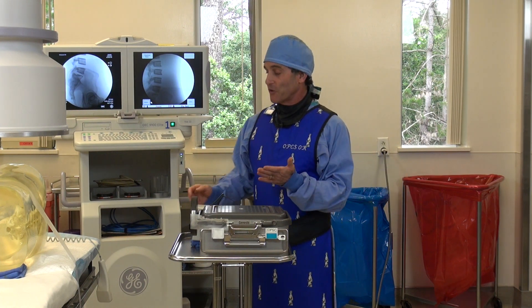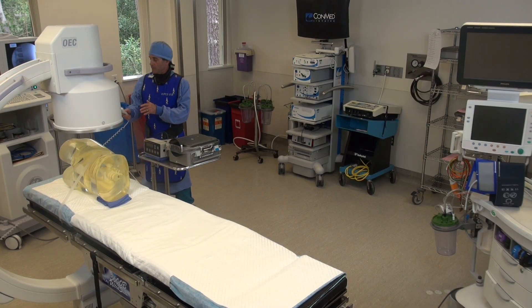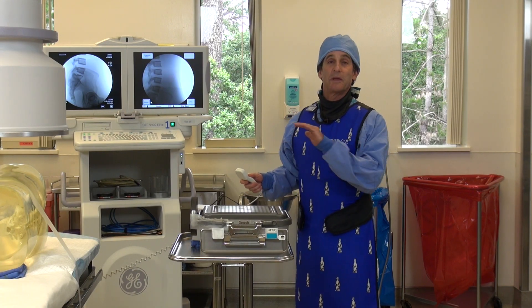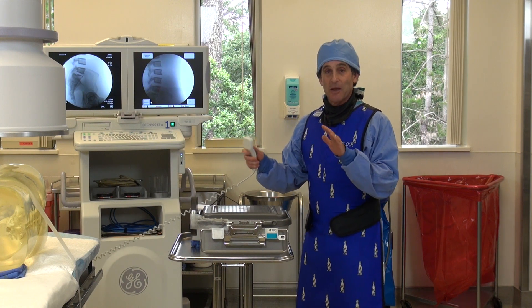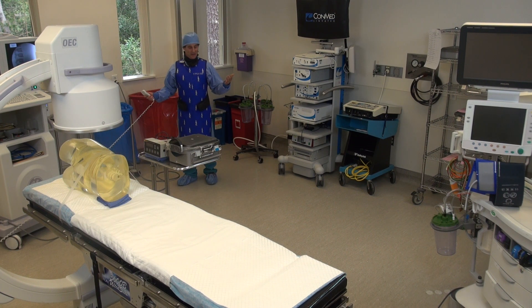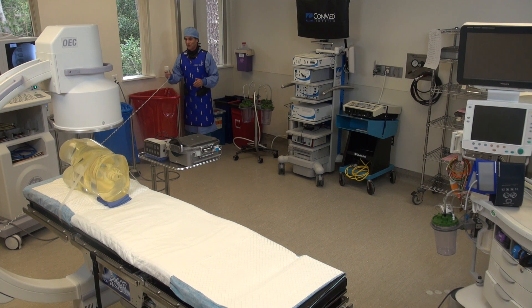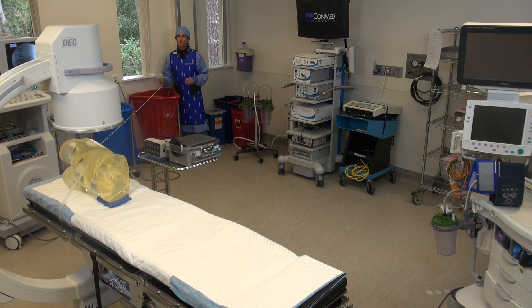So here we go with the first exposure. We're set up with a digital spot, and the reason we did that is so that all three exposures will be identical — I won't have to worry about whether I made the same exposure each time. Since I am only protected by this, distance is your next best friend. And I'm moving back as far as I can get away. We'll go ahead and make that exposure now.